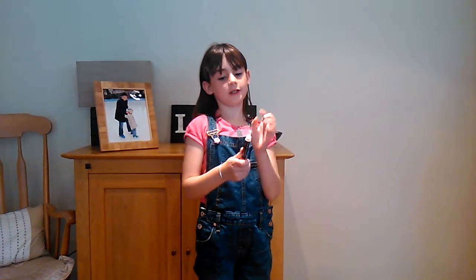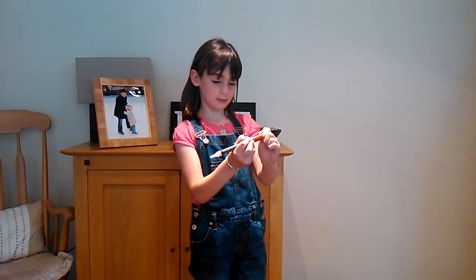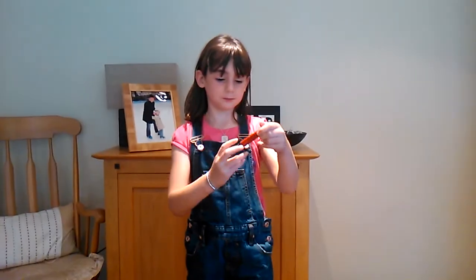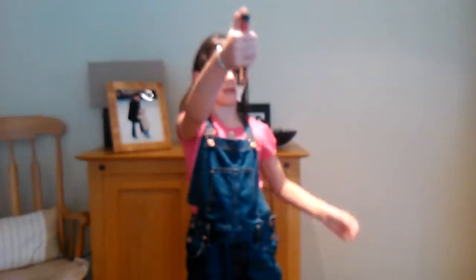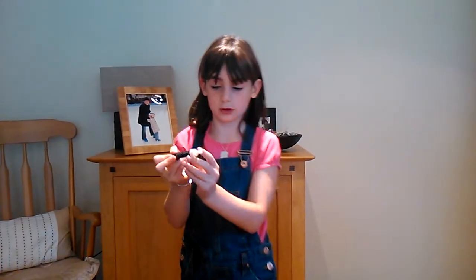So now I just put this back on and then I'm going to put it up to number two, and now I'm going to press this down like this, and you will see little raindrops here. And that's so you know it's working and the insulin's coming through.